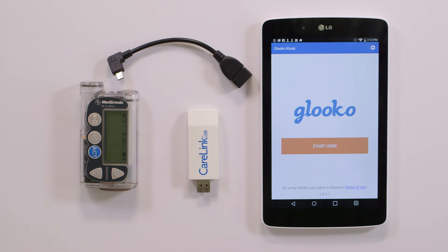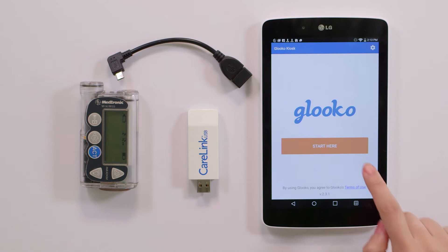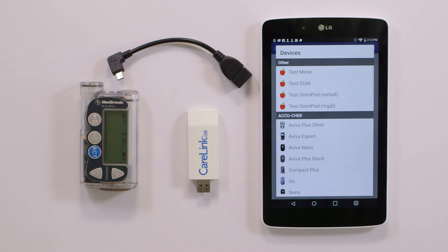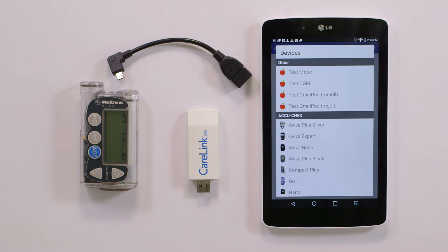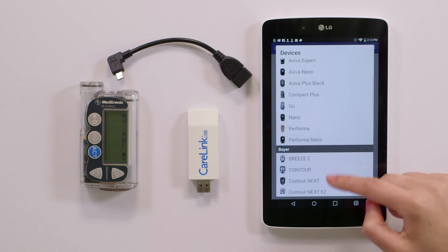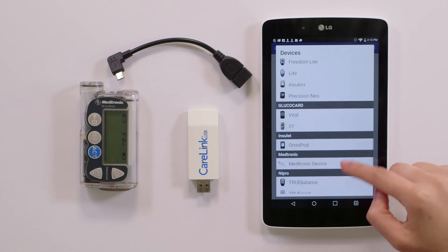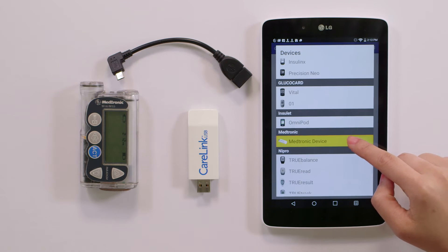From the kiosk home screen, tap Start Here. You will find our list of supported diabetes devices. Scroll until you see Medtronic, then tap Medtronic to open the Download New Data screen.